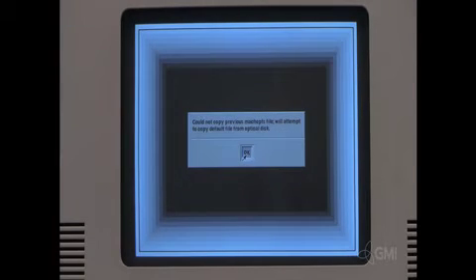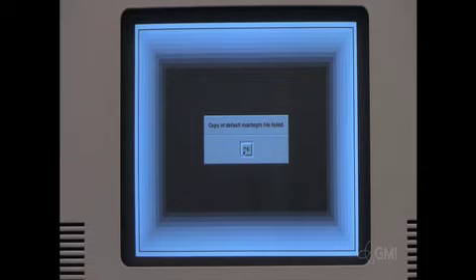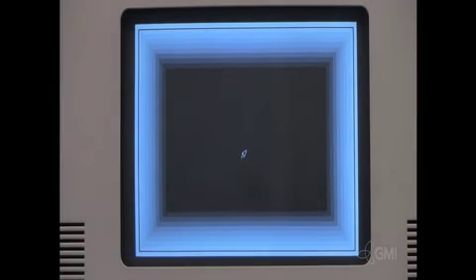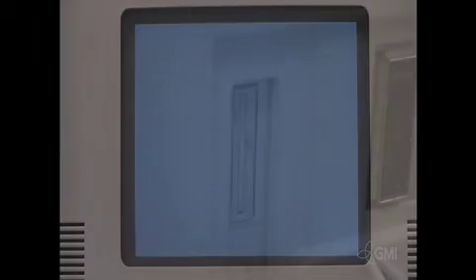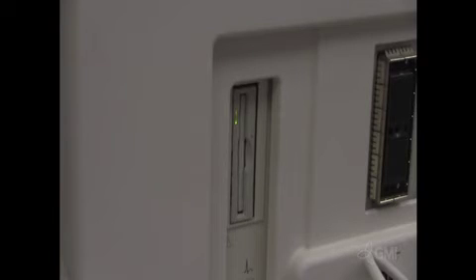The software install has not failed, it is just incomplete. Select ok. Select ok. The system will eject the software disk. Turn the system off. Restart the system.